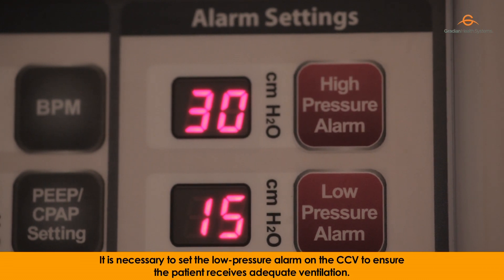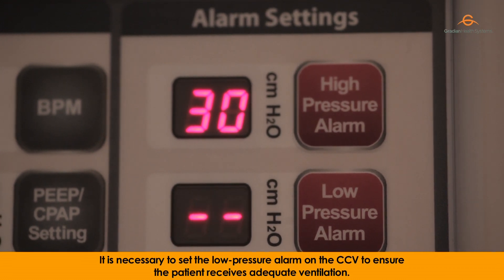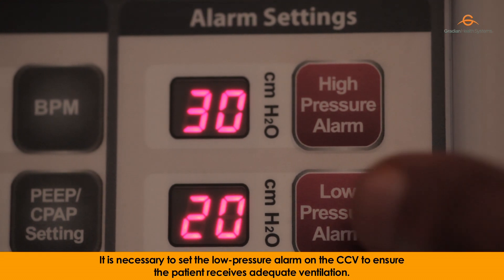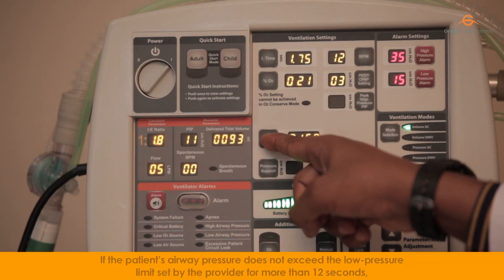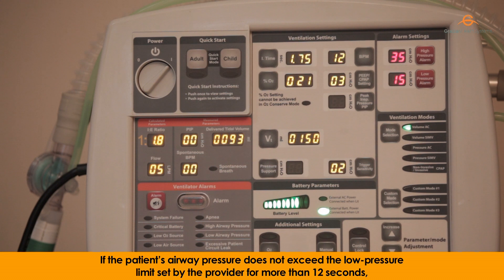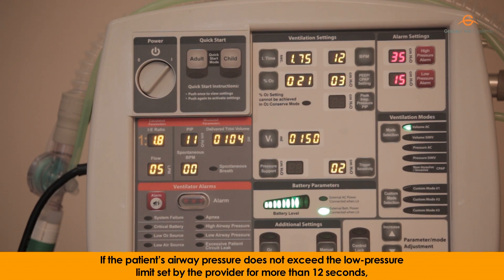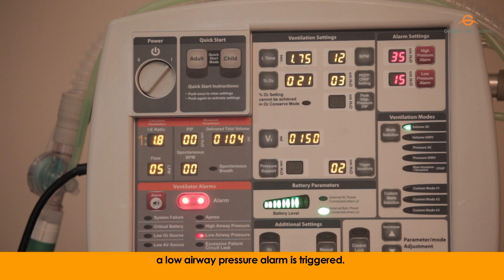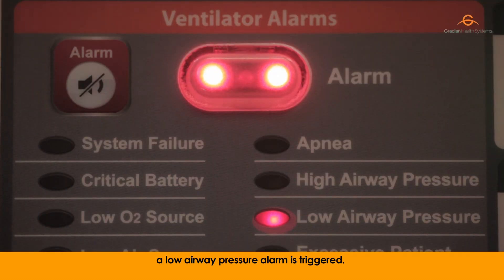It is necessary to set the low pressure alarm on the CCV to ensure the patient receives adequate ventilation. If the patient's airway pressure does not exceed the low pressure limit set by the provider for more than 12 seconds, a low airway pressure alarm is triggered.